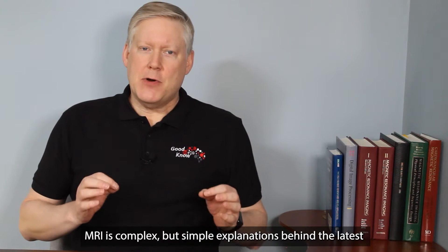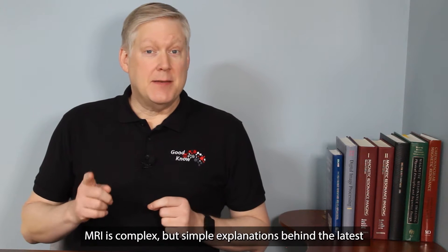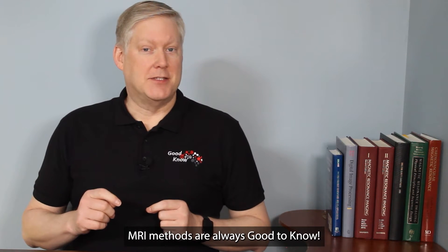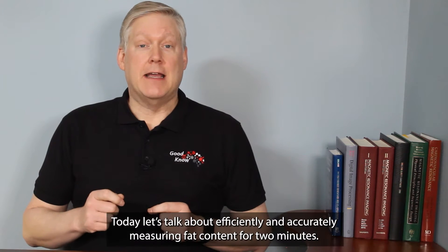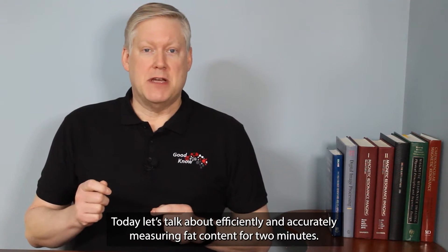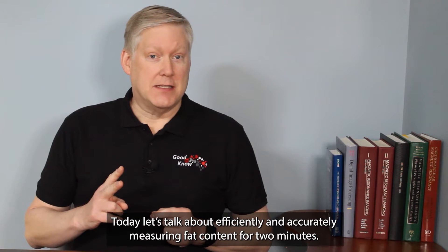Hi, I'm Shelton from Canon Medical Systems. MRI is complex, but simple explanations behind the latest MRI methods are always good to know. Today, let's talk about efficiently and accurately measuring fat content for two minutes.